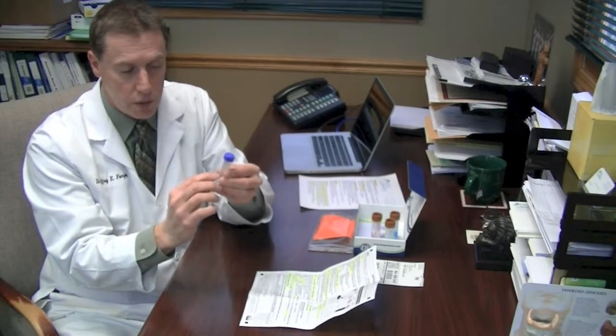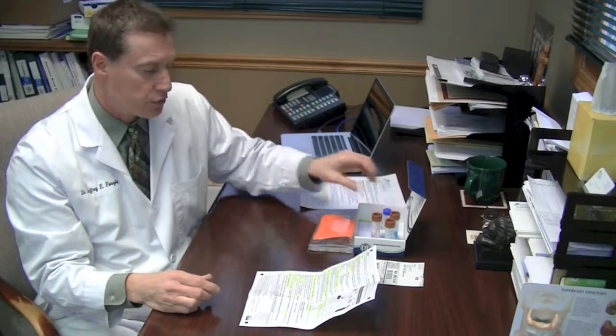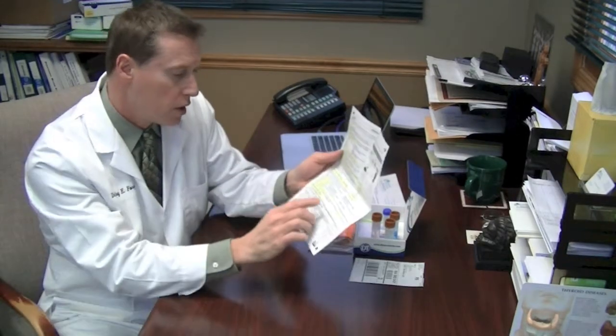Take the top off, put your mouth over the top of the tube, and you're going to just work up saliva, spit the saliva into this tube up to the top of the sticker. Once you do that, put the top on, and this too is going to go in the refrigerator. If your mouth is getting dry and you're having trouble working up enough saliva to fill the tube, take a drop of lemon juice, put it on your tongue, and that will help produce some saliva for you.